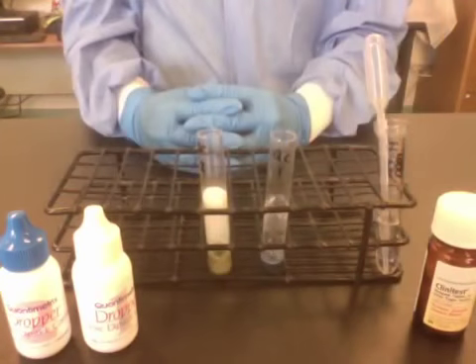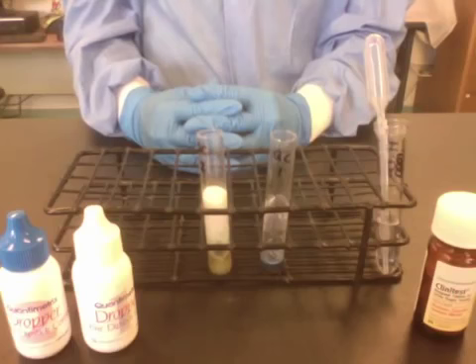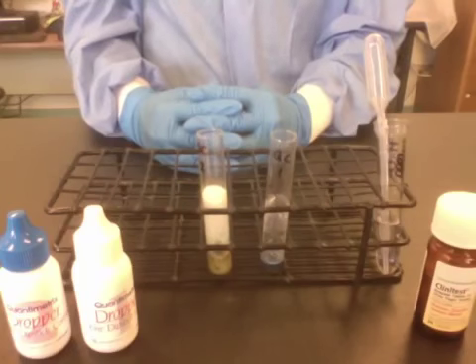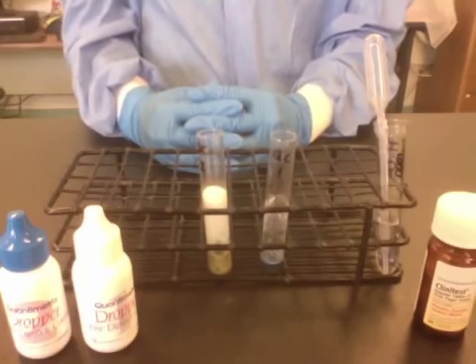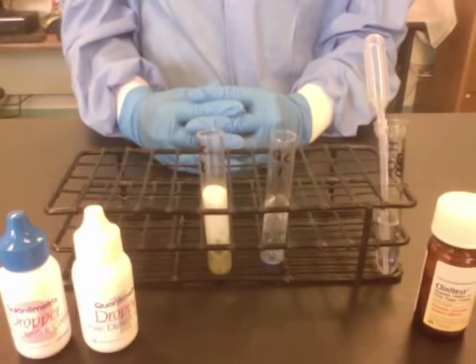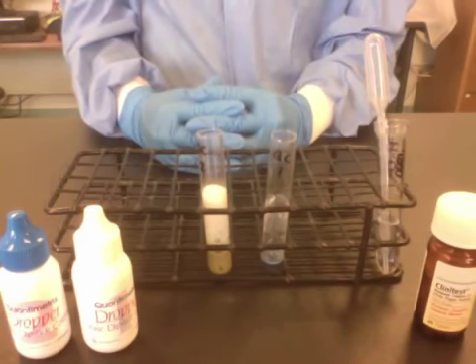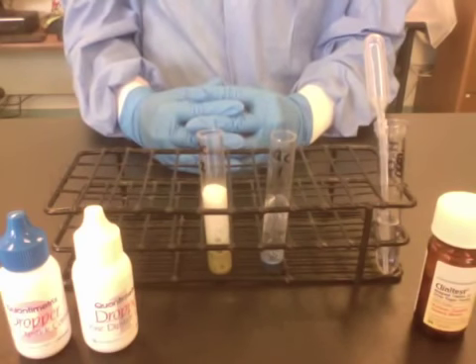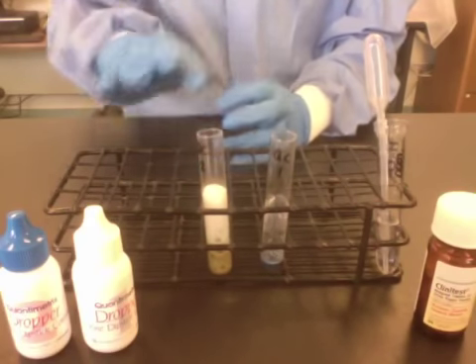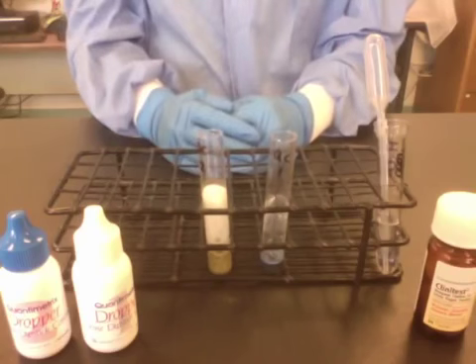Wait at least 15 seconds for the reaction to occur. Do not touch the tube while the reaction is occurring and there is boiling in the tube. These tubes can become very hot.